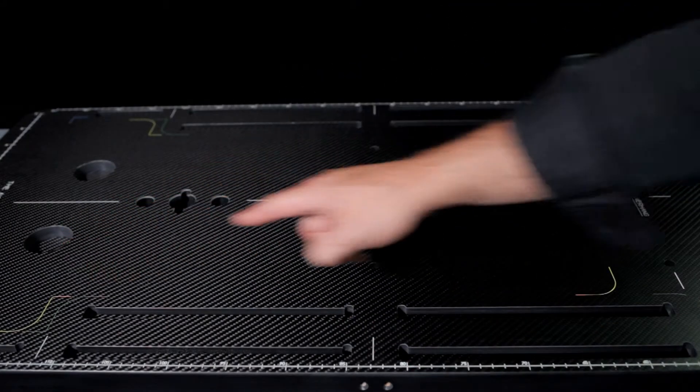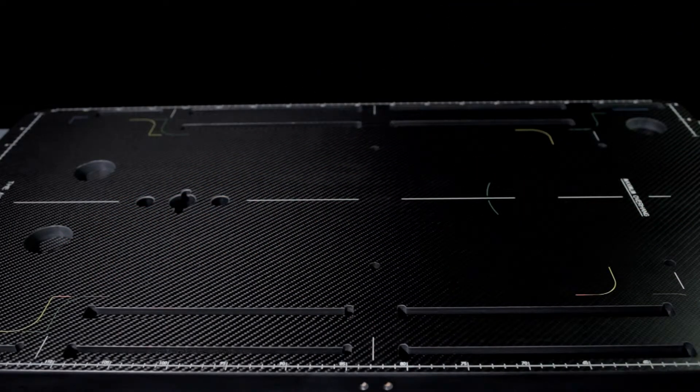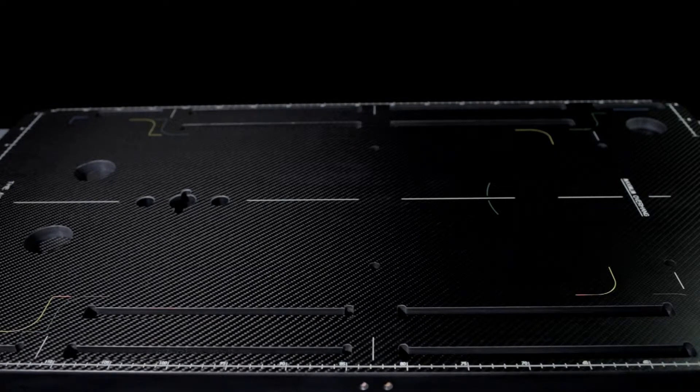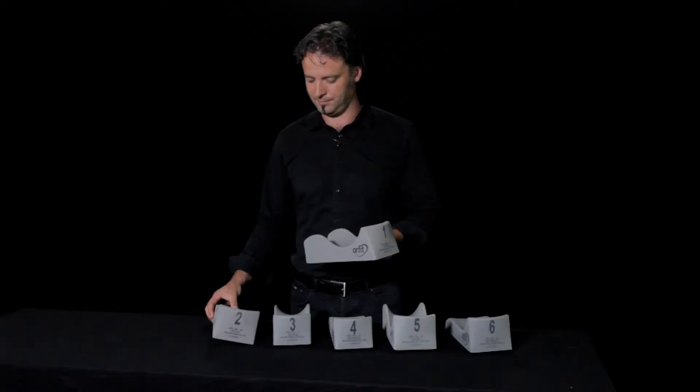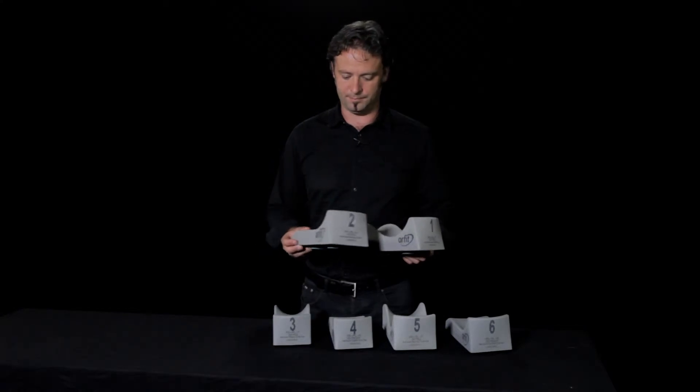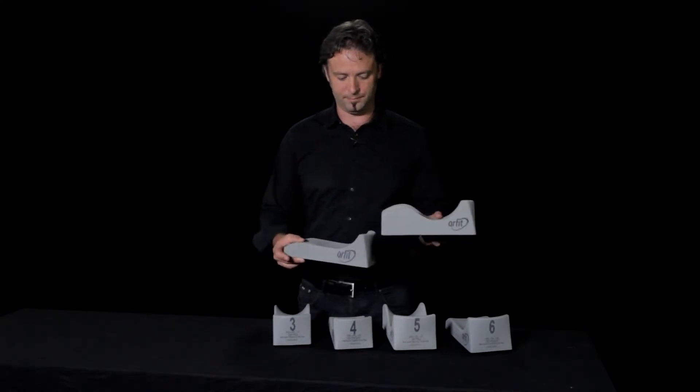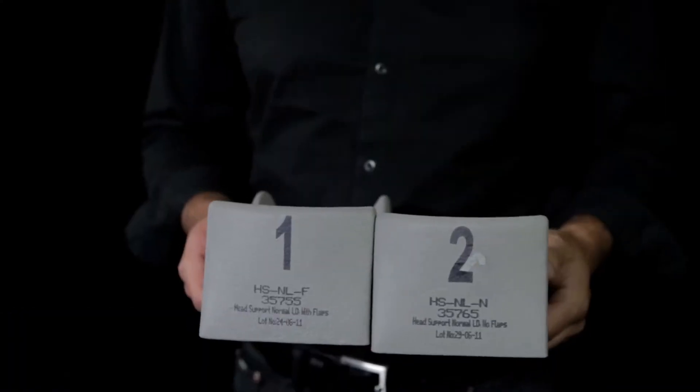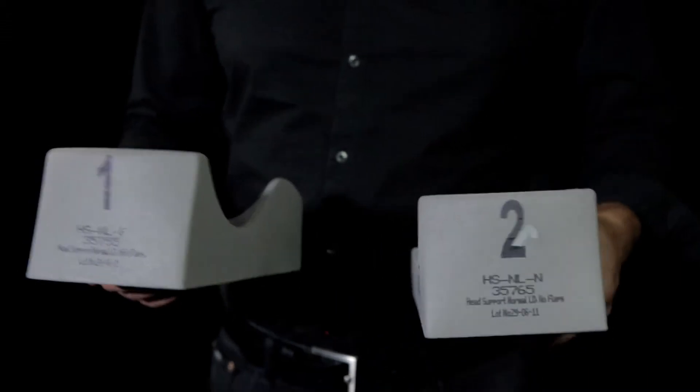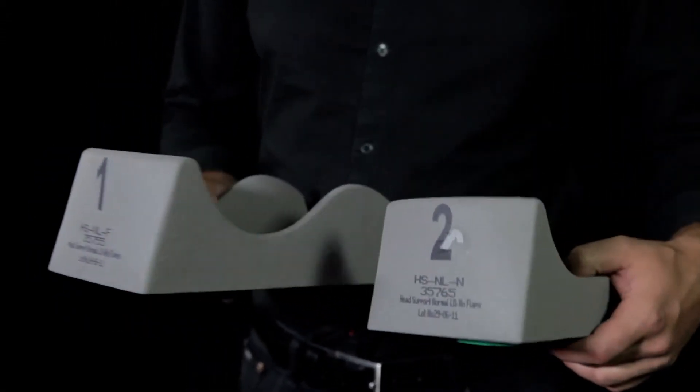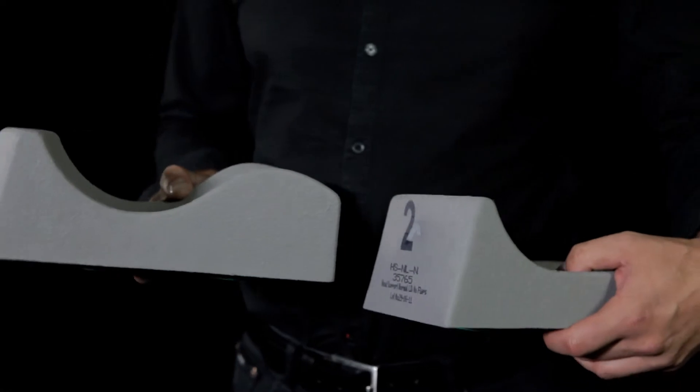The base plate has also been fitted with a number of holes to accommodate the positioning bosses. The head support set comes in six models. Models 1 and 2 are standard head supports, which are suitable for 85% of the western patient population.